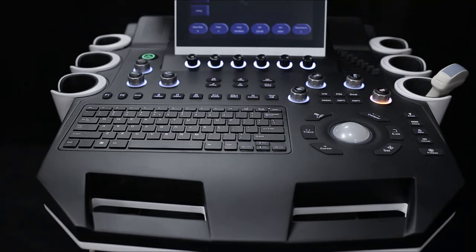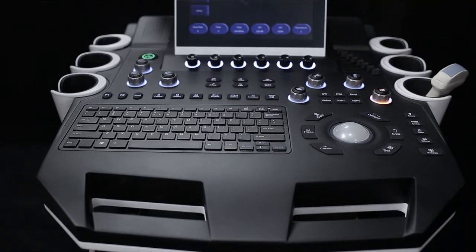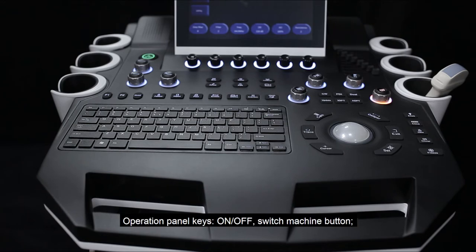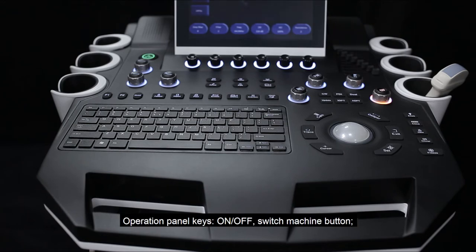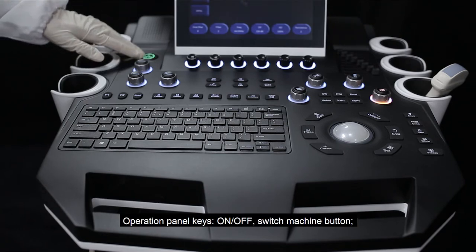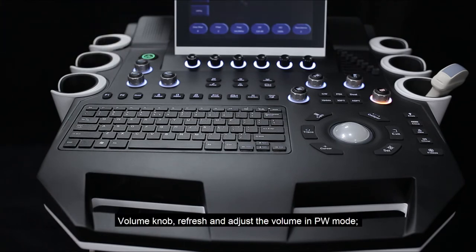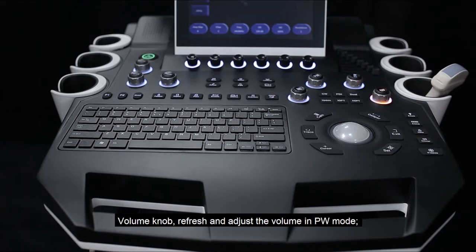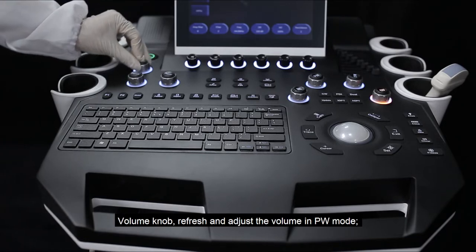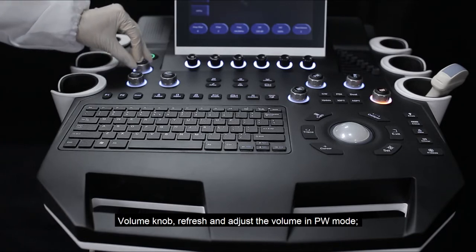Introduction to the machine case and operation panel. The on and off switch machine button is used to power the device. The volume knob can refresh and adjust the volume in PW mode.